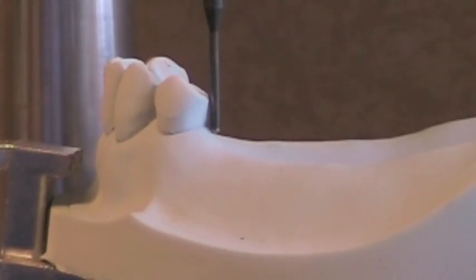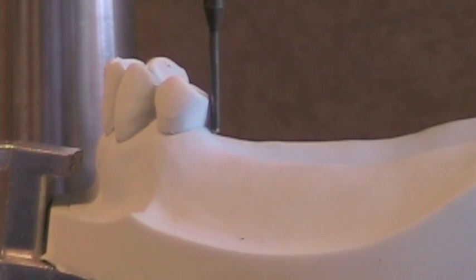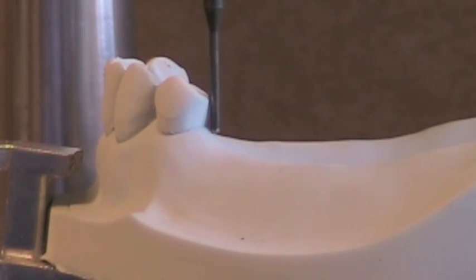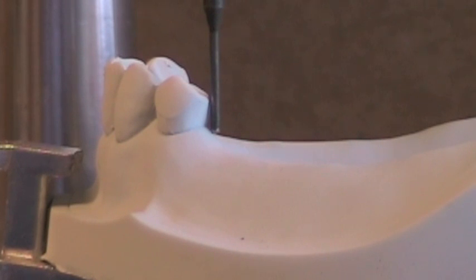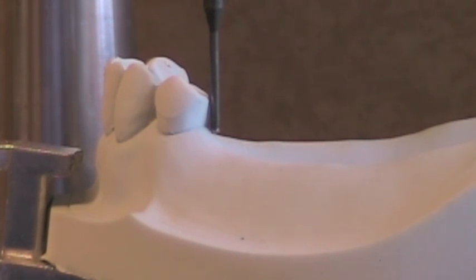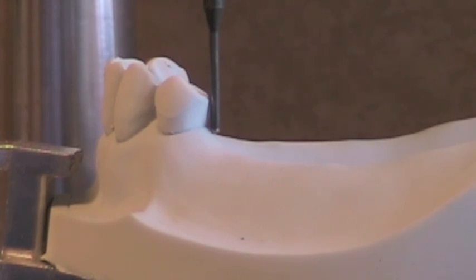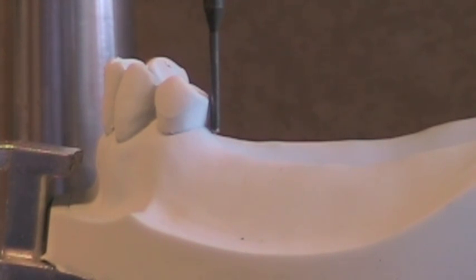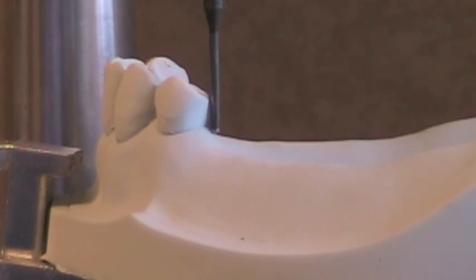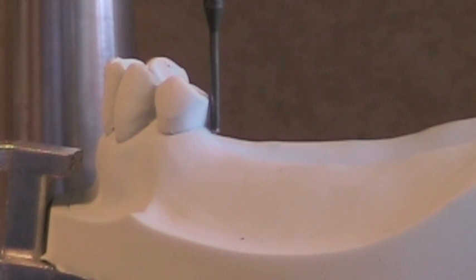When you start to prepare your guiding planes, after you've designed your removable partial denture and picked your path of insertion, you want to have your cast on your surveyor at the desired path of insertion right in your cubicle, in your operatory, whenever you prepare your guide planes. You should never prepare guide planes intraorally without having the surveyor and your cast at the selected path of insertion before you begin.